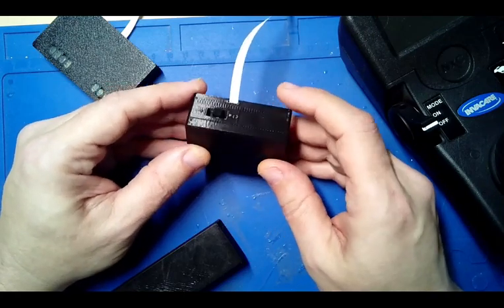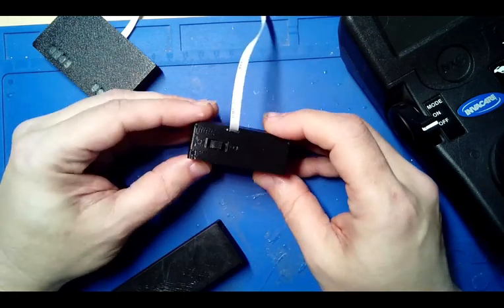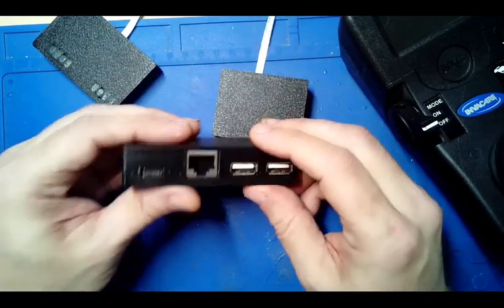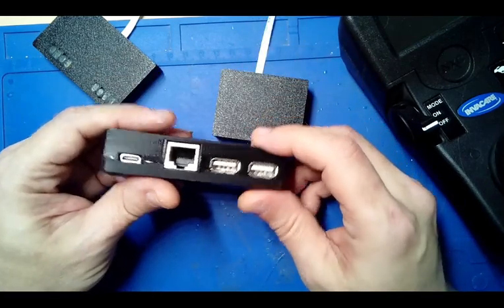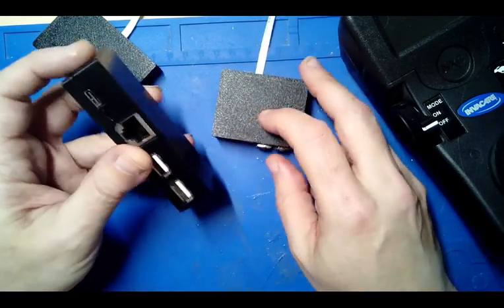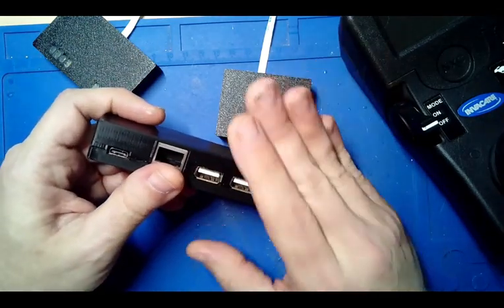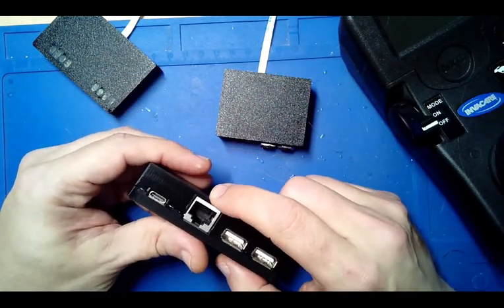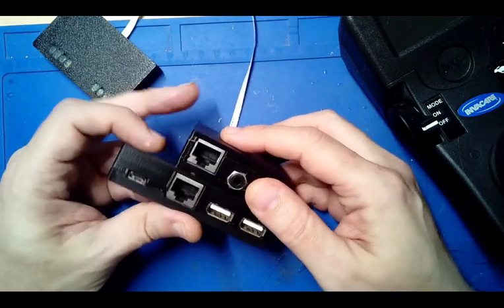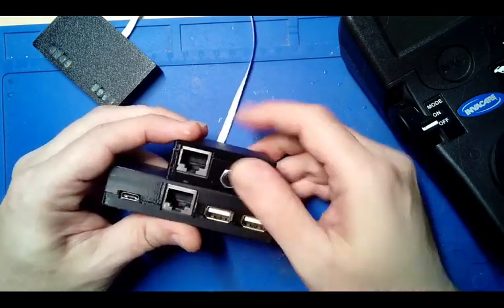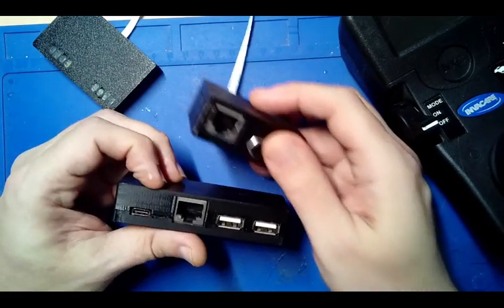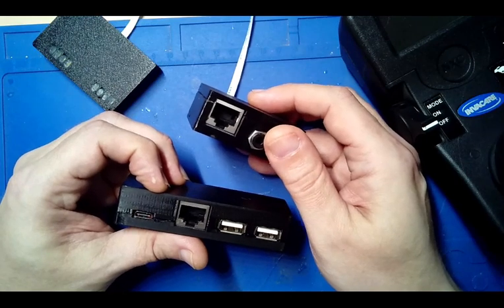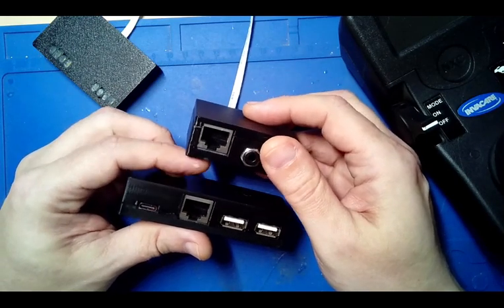The base unit, which goes kind of tucked away behind the chair, is exactly the same as before. It has the RJ45 connector which will go up to this unit which will be closer towards the head of the chair, the control of the chair.